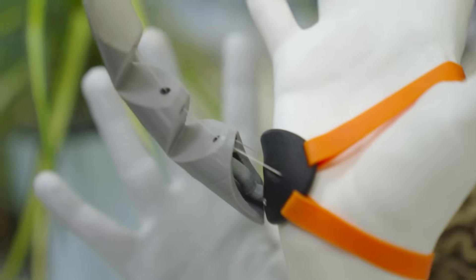If you are smart about the design, if you can think about intuitive design, you can make technologies that are plug and play. The hardest thing about using the thumb was learning to control it. But in the future, could these robotic limbs be connected directly to your brain via an implanted chip? At the moment, which is the very first earliest days of this field, I think we want to provide a proof of concept that yes, we're very comfortable in our bodies with our five fingers hands. But any limitations in using extra fingers and arms is a limitation ultimately of our imagination as humans. There are multiple ways that we are currently demonstrating to embed additional body parts into our bodies, into our brains, into our cognitive awareness. And there is no reason why we shouldn't redesign the world in order to take better advantage of these technologies.